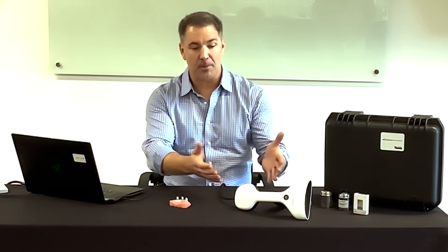Hello everybody, Patrick Dewey here, president and founder of SIN Dental USA. Today we are here to talk about our Micron Mapper.